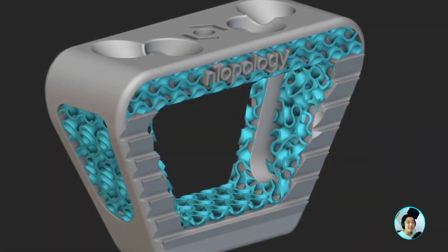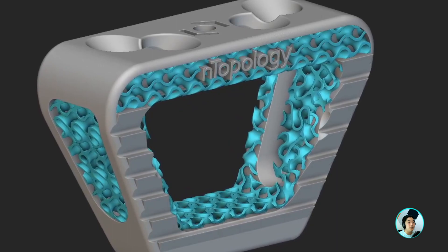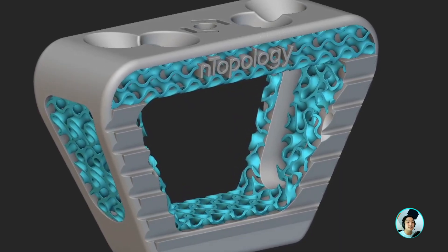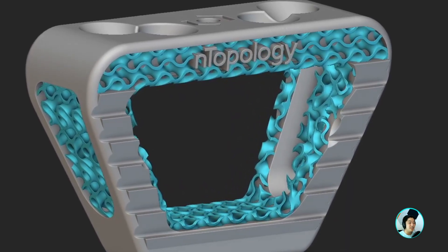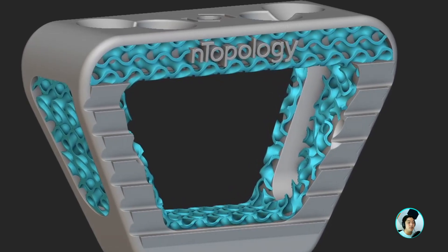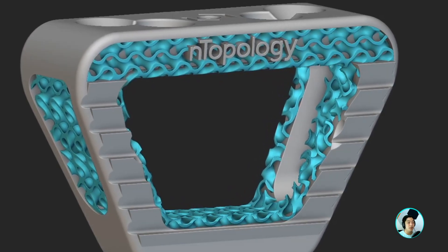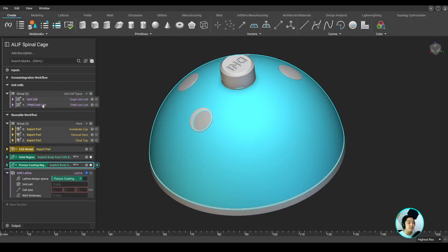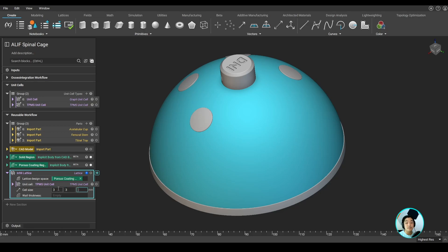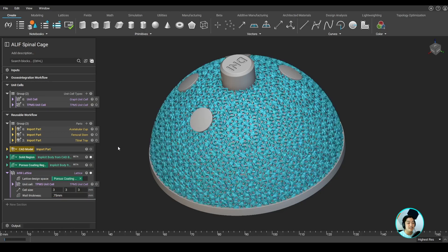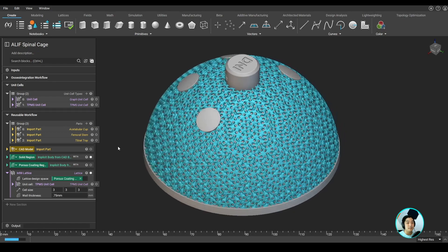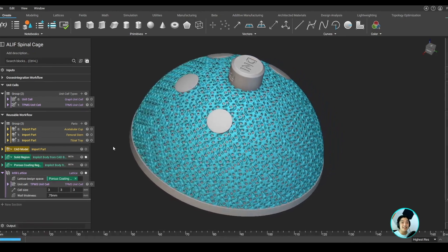Hello everyone, Yuki here, and I'm going to show you how you can generate osseointegrative pore structures, make quick design changes, and easily create workflows that are reusable on other parts. By leveraging these capabilities in nTopology to develop their medical devices, we've seen customers reduce the overall product design cycle time by up to 90%. Let's dive right in.